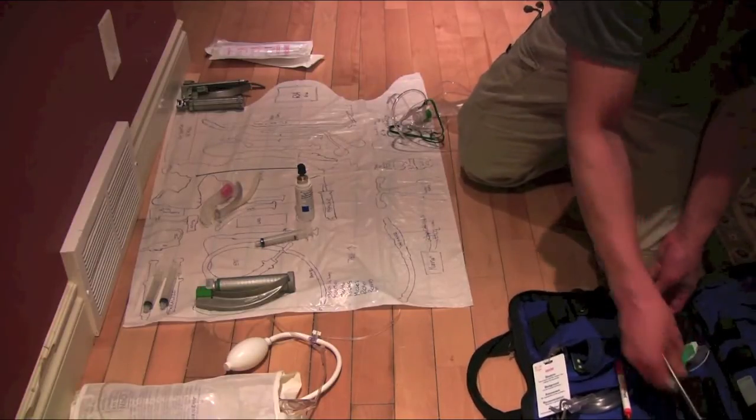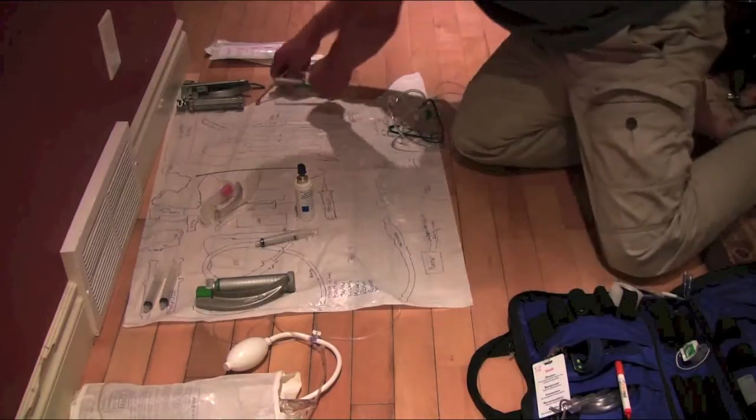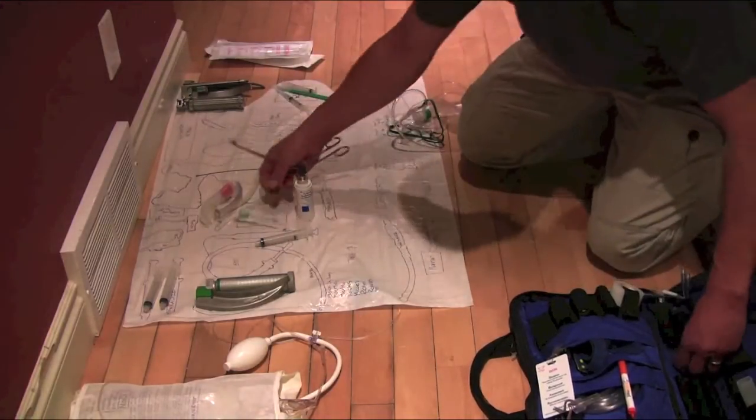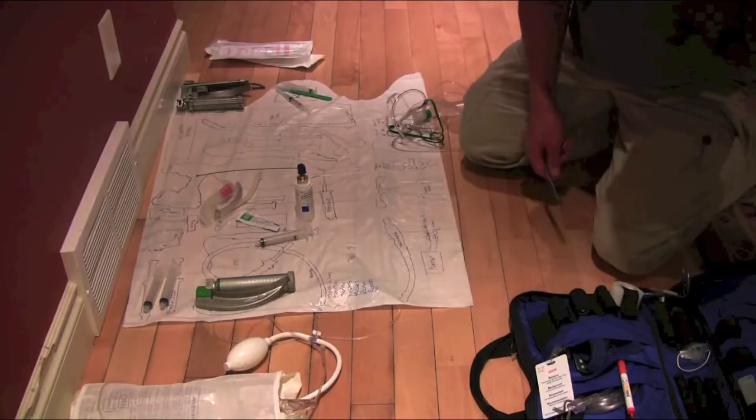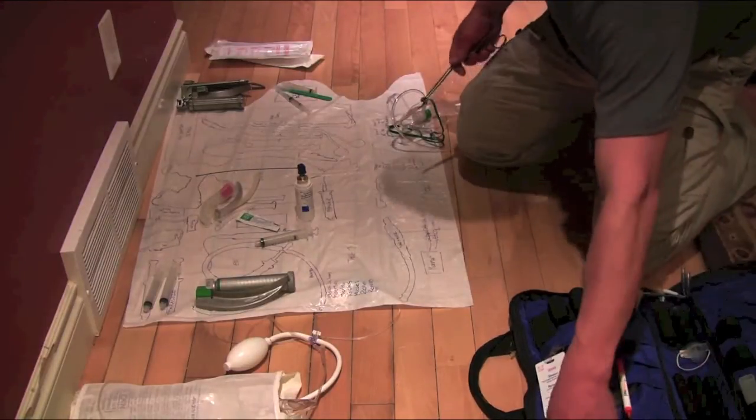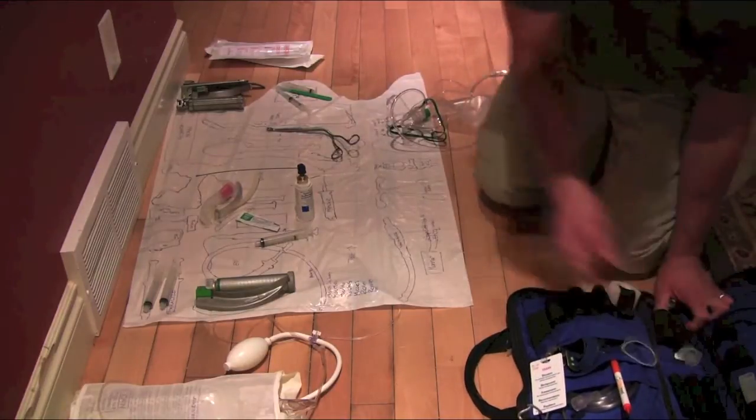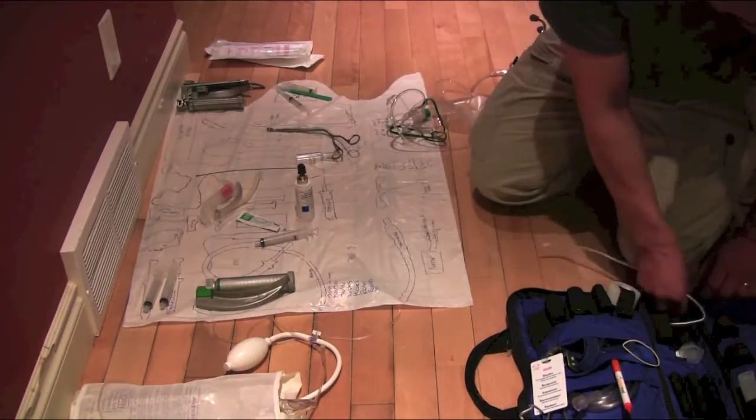You can see the cric set up. Put it over here. Something to drop some local. Lido lube. Stylet. Might be a bloody airway so I'll get a Yankauer aspirator out. We'll need a couple of tubes.